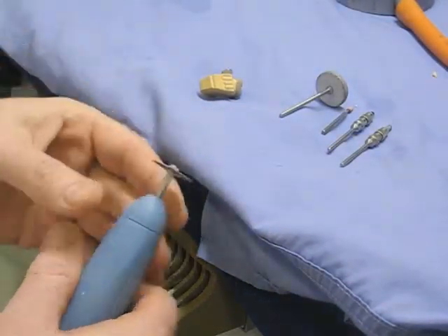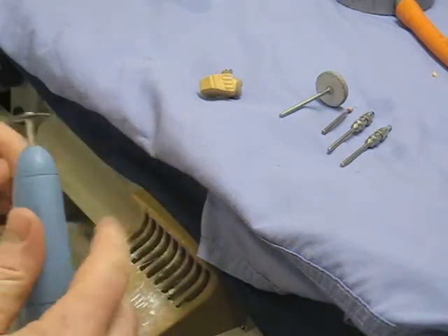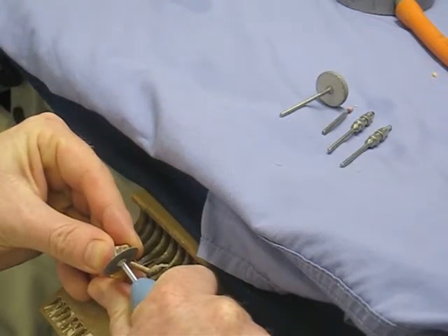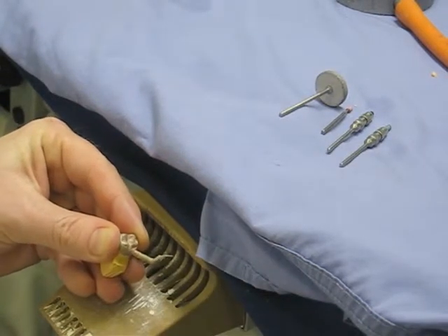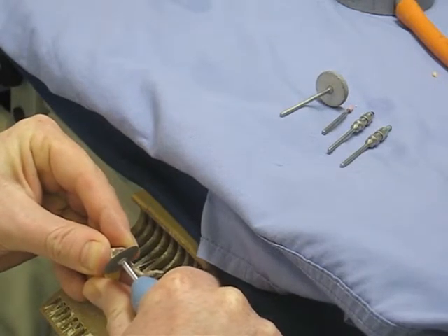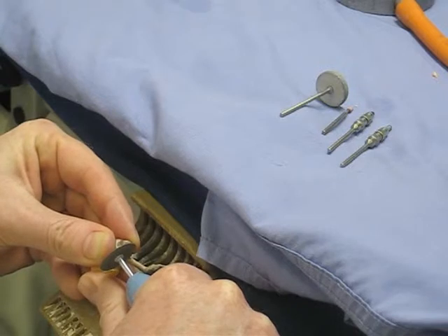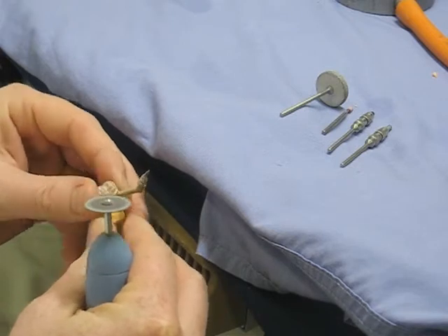We use a series of abrasives to finish off the crown. First, a cut-off disc to get rid of the sprue — you can see why we positioned it where we did, so we can remove it easily. It does get a little bit warm, so asbestos fingers are handy, or maybe a little bowl of water on your desk as you work.